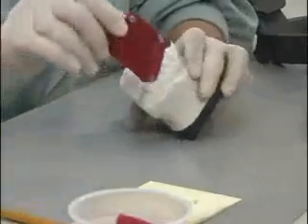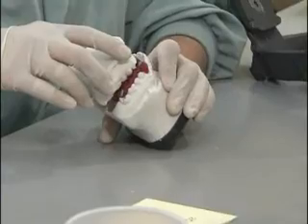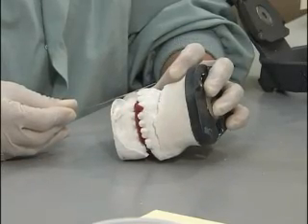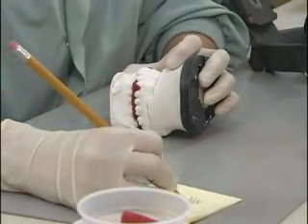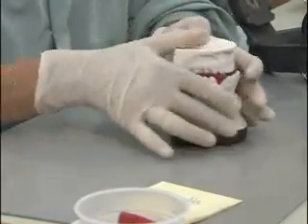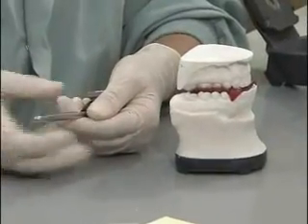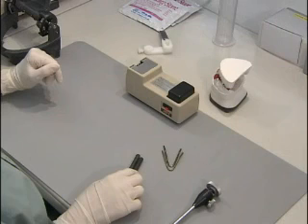Insert the CR record between the models and ensure that the models do not rock. Now measure the distance between the lines once again and write that number down. Subtract the first measurement from the second and extend the incisal pin the difference of those two measurements.